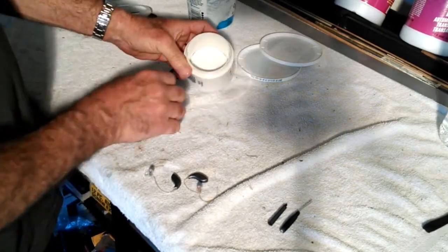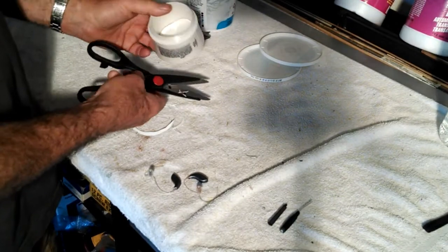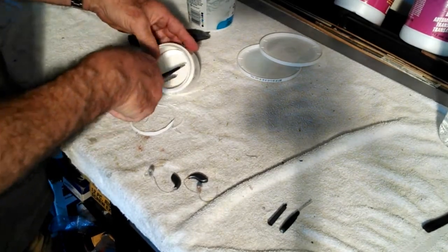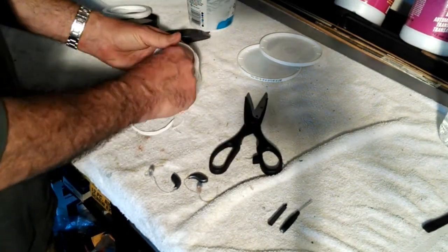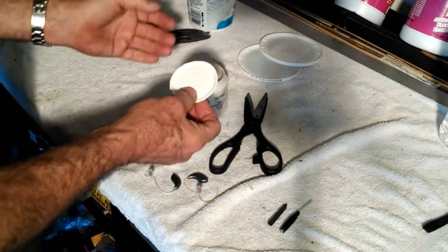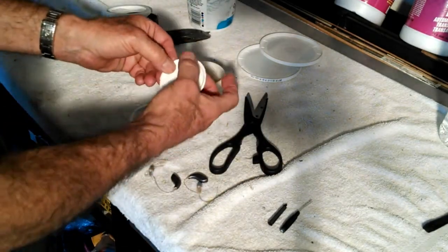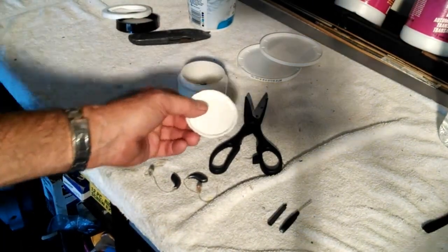I think that's it. One more thing I have to do is cut some holes in the separator so that the desiccants can suck the moisture off of the hearing aids overnight. I've got to put some holes in this — I'm going to pause a second, I'll be back.